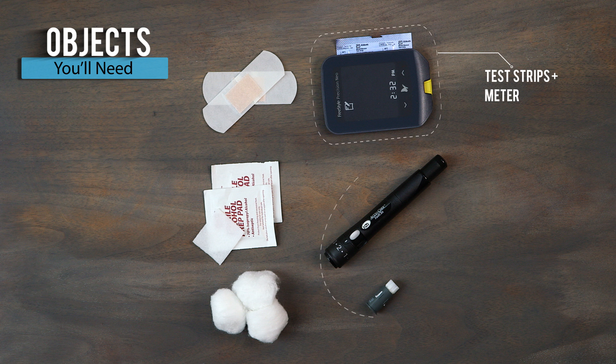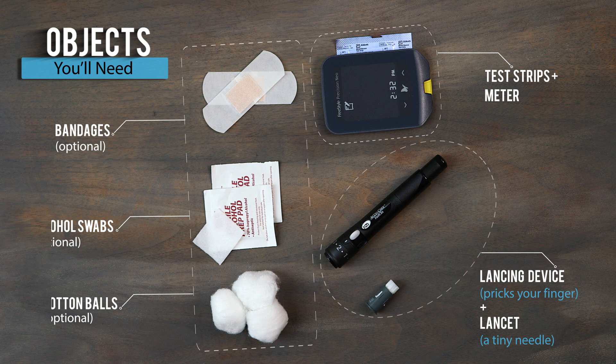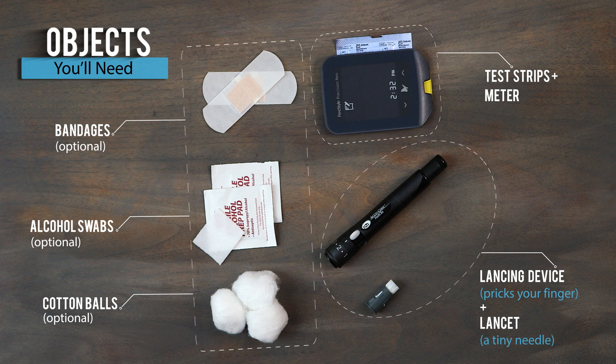The test strips and the meter, lancing device and the lancet, bandages, alcohol swabs, and cotton balls.